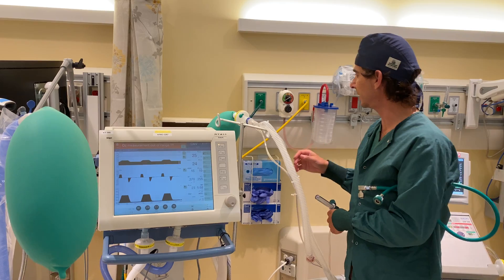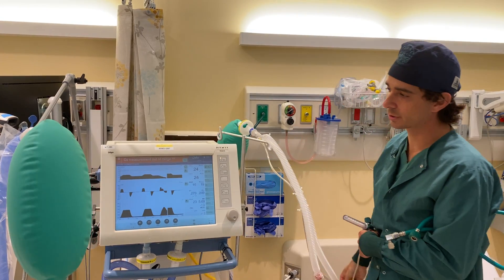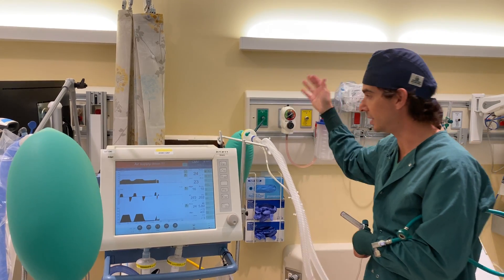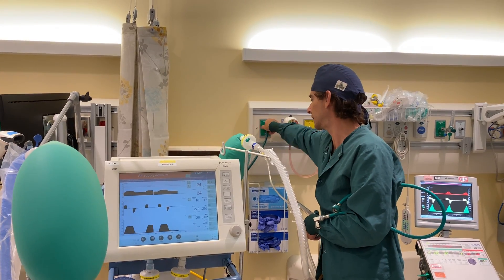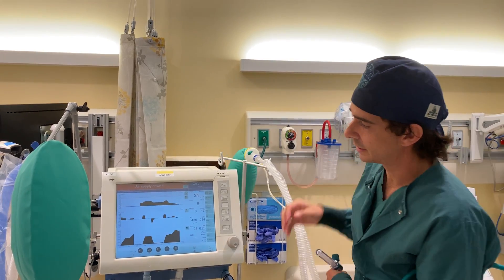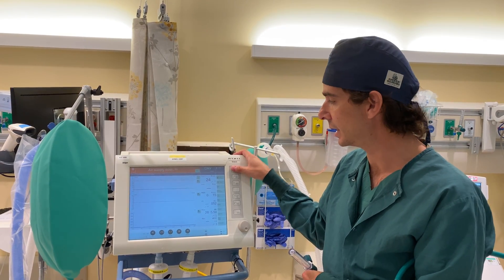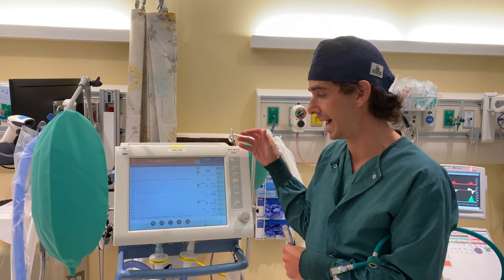The other thing to note is with this ICU ventilator, if I disconnect it from our high-pressure air source, it's going to give us an alarm to tell us that the air supply pressure is down. But it's still getting high-pressure 100% oxygen, so it continues to run. But if for some reason our oxygen cylinder or our central supply of oxygen were to run out — as I'll simulate here — the ventilator simply stops running. This ventilator does not have a built-in turbine or compressor, and so cannot run without a high-pressure oxygen source. Some ICU ventilators do have built-in compressors or component compressors that can be added on.